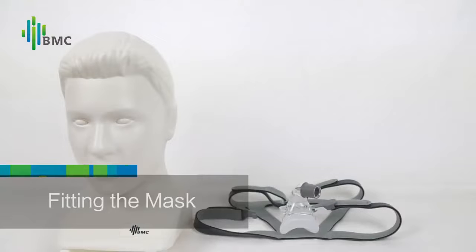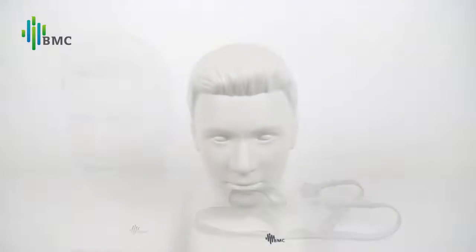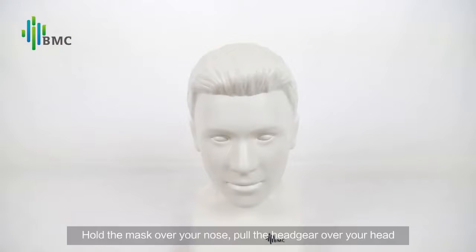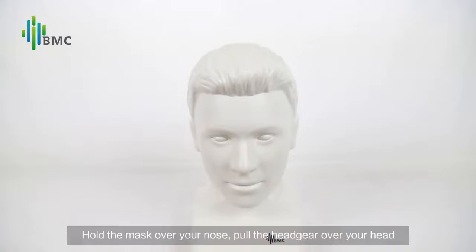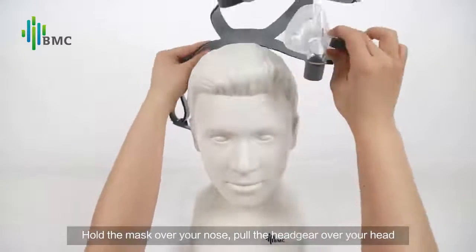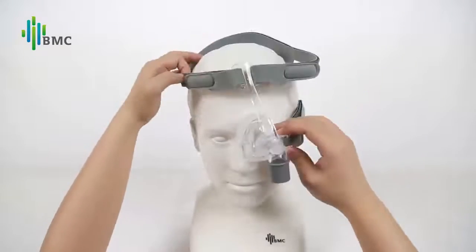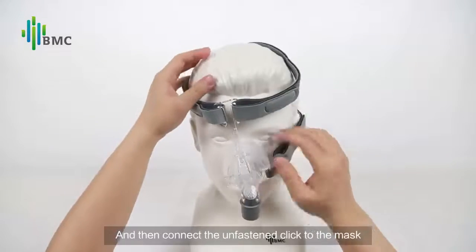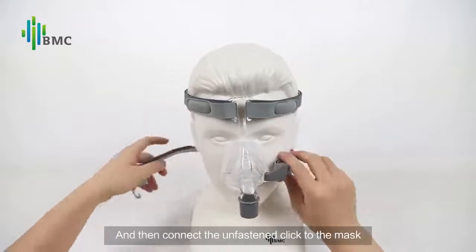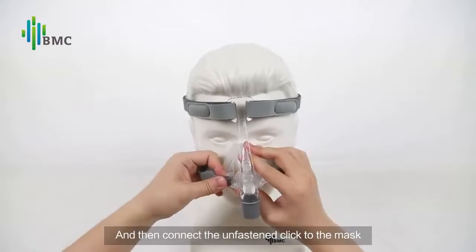Fitting the mask. Hold the mask over your nose and pull the headgear over your head. Then connect the unfastened clip to the mask.